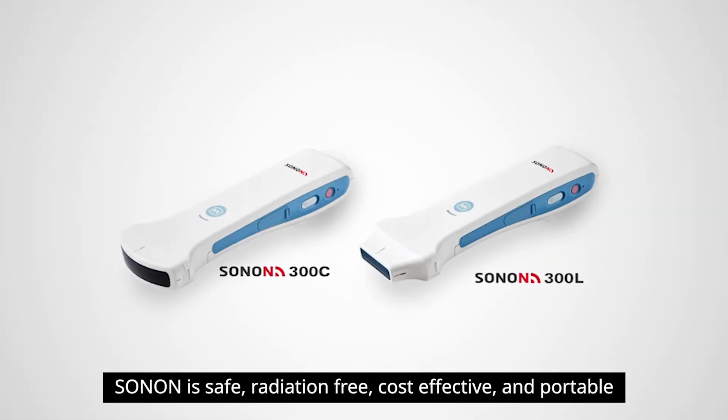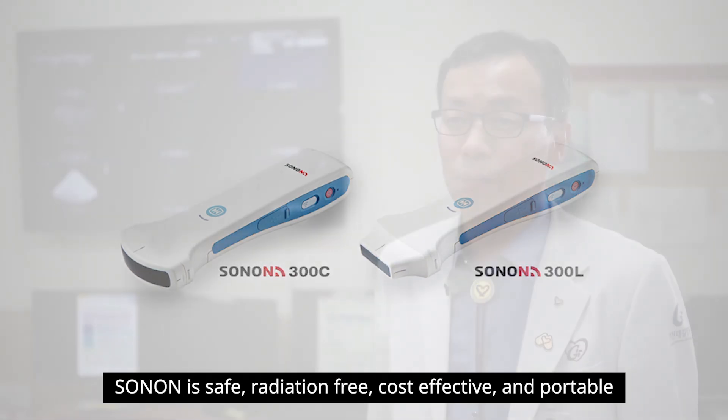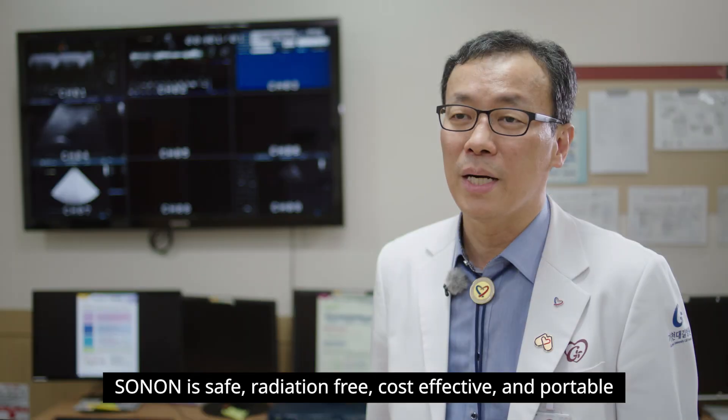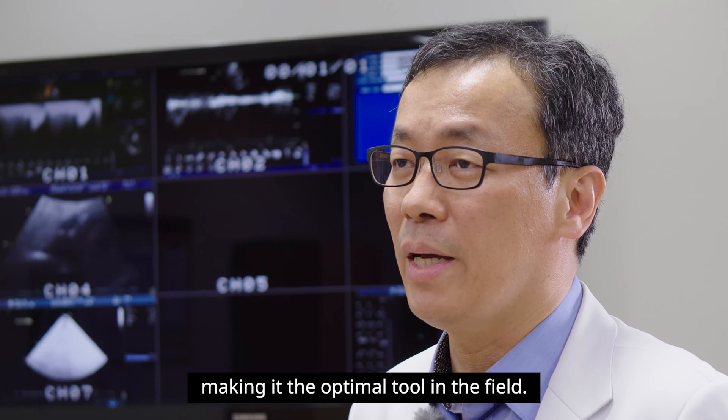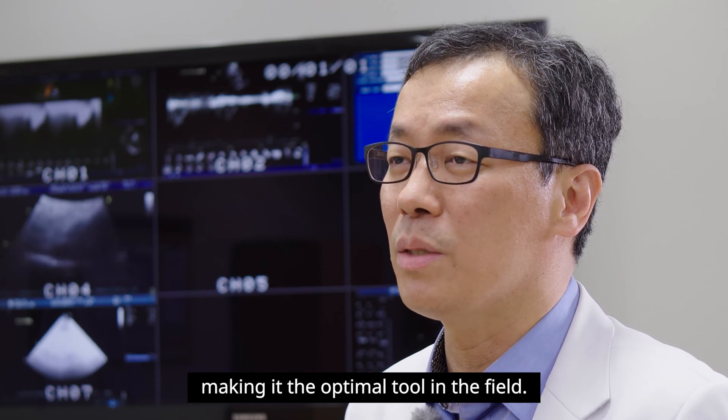Sonon is safe, radiation-free, cost-effective, and portable, making it the optimal tool in the field.